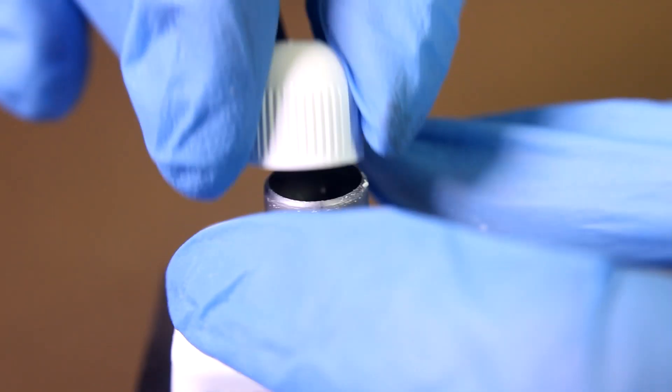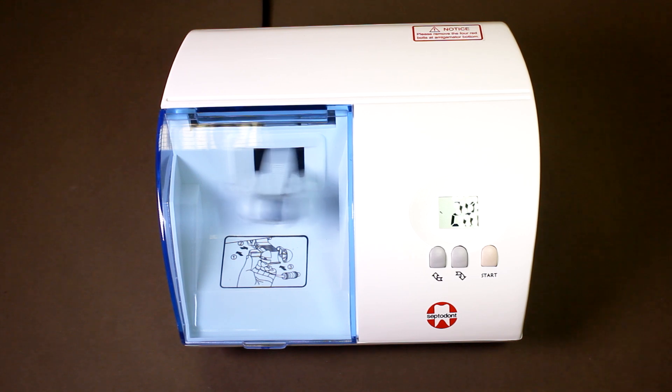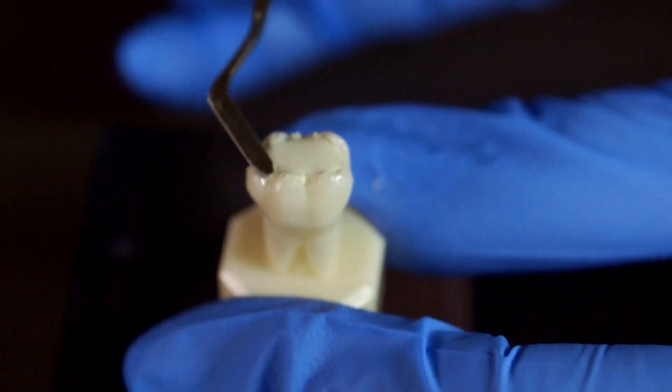The whole process takes only 12 minutes, split into a maximum of 6 minutes mix and working time and the remaining 6 minutes to final set.